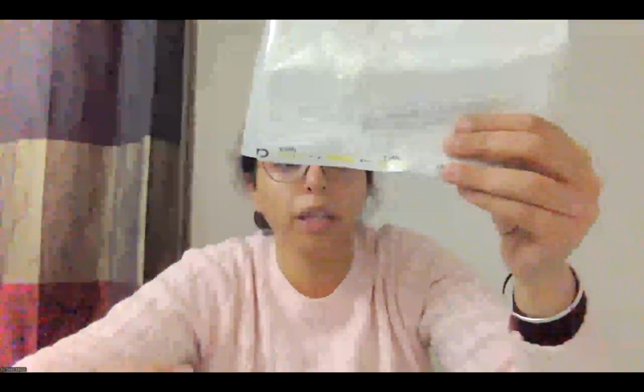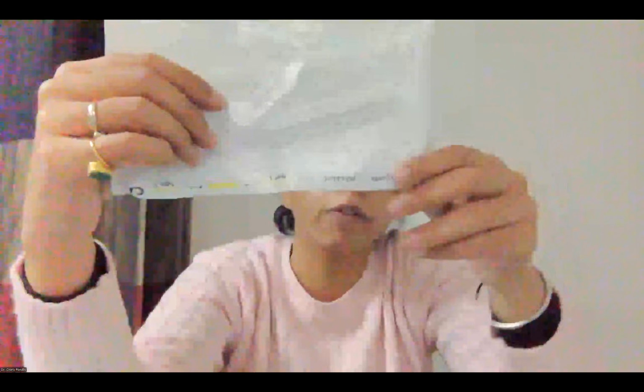Luer-Lock syringes look like this. They have a luer or a screw at their distal end. These are important because they provide tight connection to the catheter, and there's no spillage of contrast or saline, whatever you are injecting. So there's no injury to the operator, less spillage, and more controlled injection. So always for vascular procedures, we use Luer-Lock syringes.